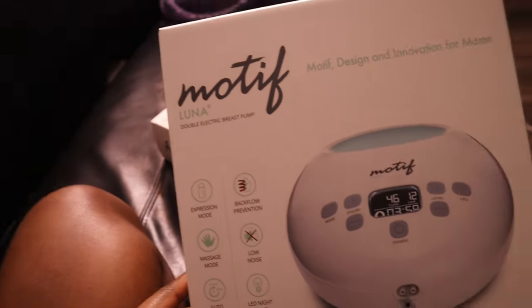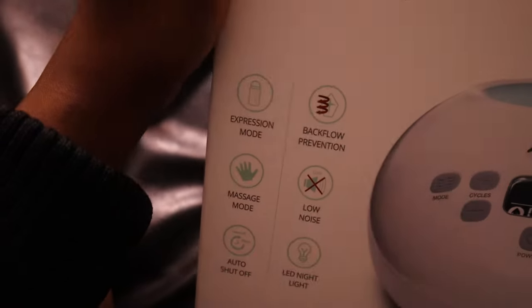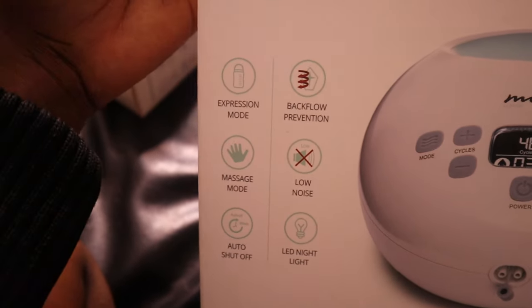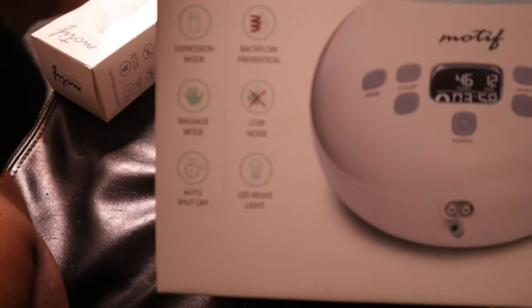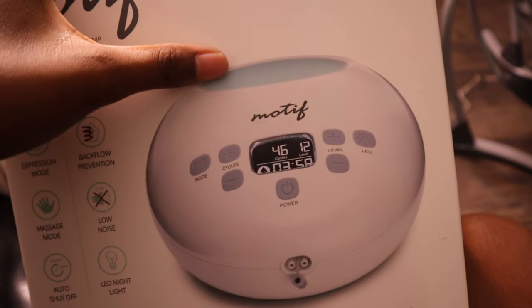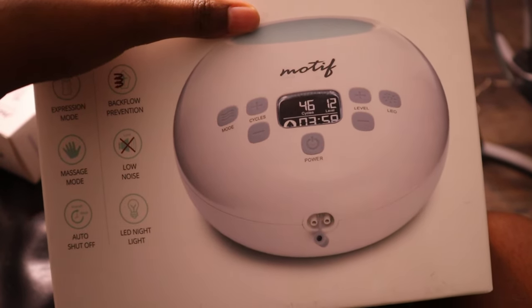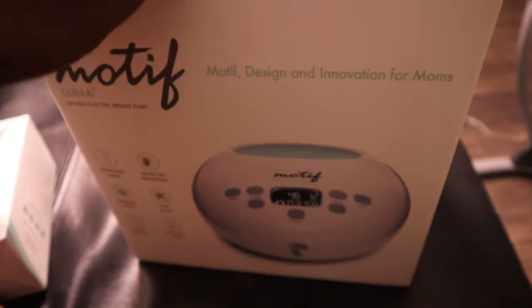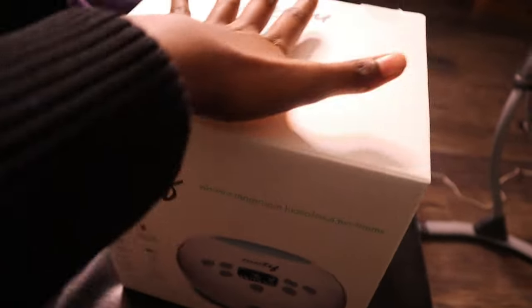It has a lot of good reviews so yes, I am excited. It has a freaking LED night light — it's right there. If you have a newborn, night lights are amazing because you don't want to turn on the bright light and wake them up. So yes, let me unpack this.